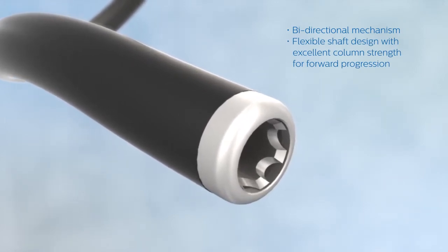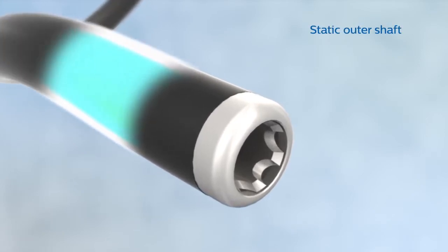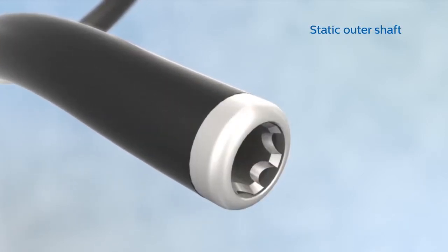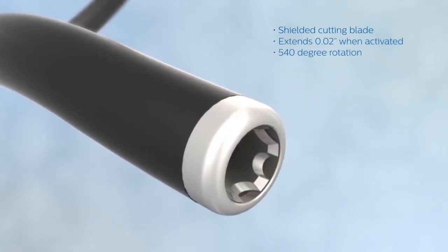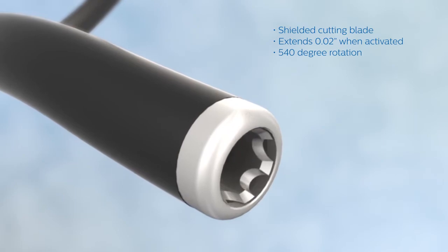For physicians who prefer not to use an additional outer sheath, the shaft remains static. A shielded cutting tip allows the blade to be extended only when activated, offering a full 540-degree rotation.